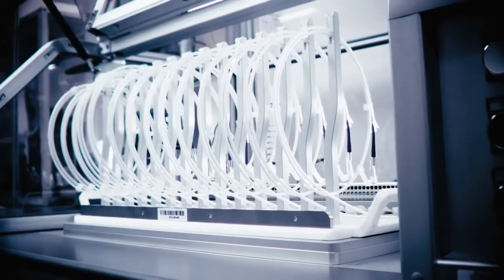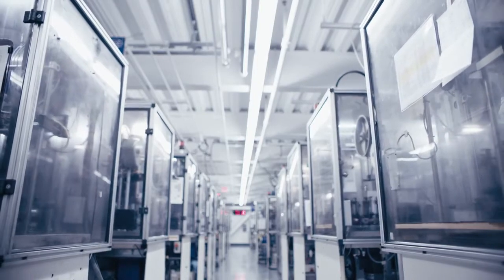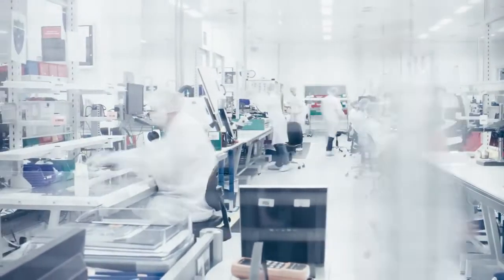With Direction, you'll get the precision and control you need to get the procedure done. As you continue to push the boundaries of interventional radiology, we will continue to build the products with the precision and control to make it possible.